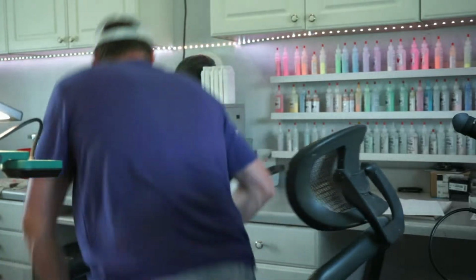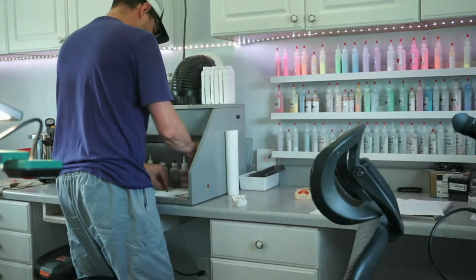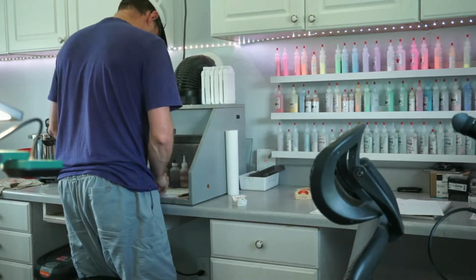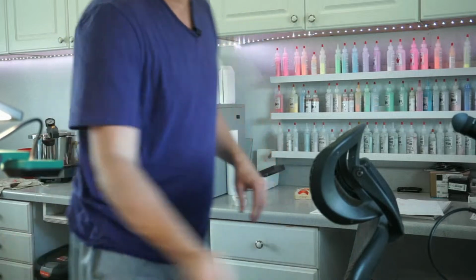But let me get set up over here and see if I can do my acrylic over here. But yeah, I won't bore y'all with the acrylic part of this.